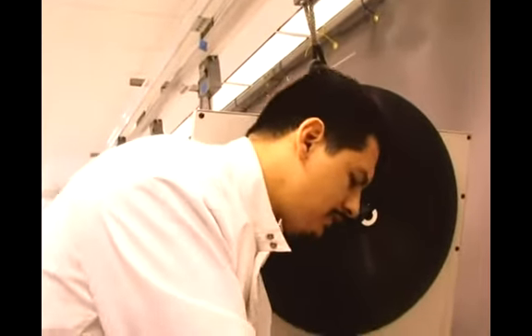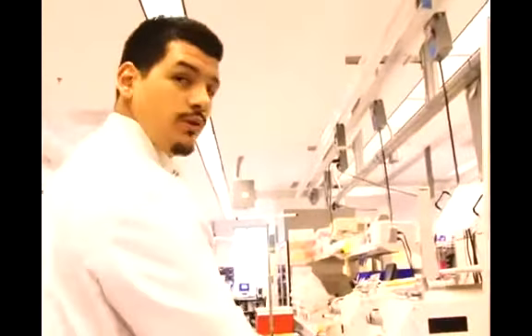So after we're done spinning it, we have to do what's called expressing it, or separating the plasma from the red blood cells.